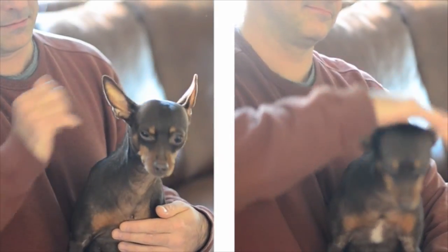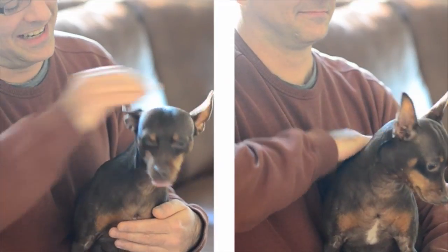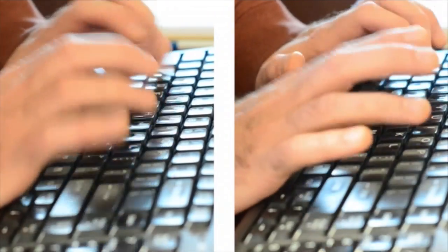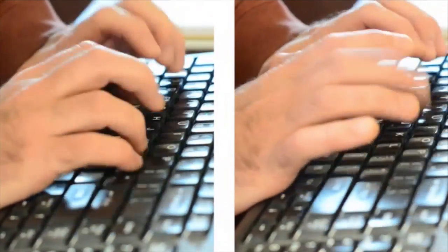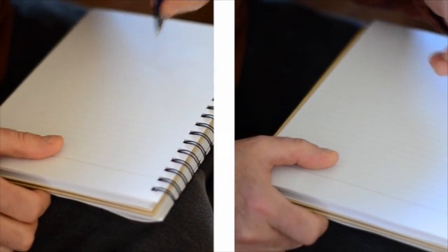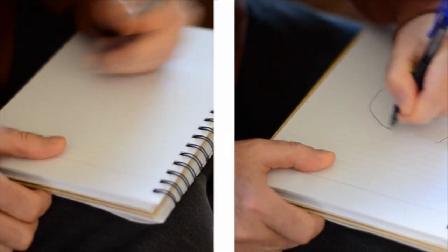Shaving every day is still a little bit of a chore, but much less than what it was. This would be just petting my dog — as you can tell, she was irritated with the device on the tremor side, but was fine with the other side. She was very expressive telling me to stop. It's very difficult to type on a keyboard turned off versus turned on, and this is something I have to do in my daily work. You talk about the social stigma associated with this, and you've done a pretty incredible job in overcoming that stigma and really becoming a voice for this condition. I need to share that with everyone — people don't need to live like that.